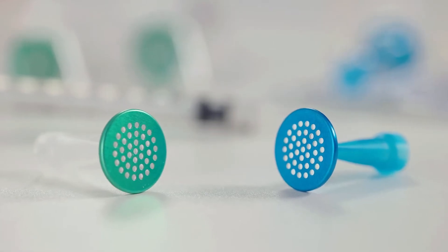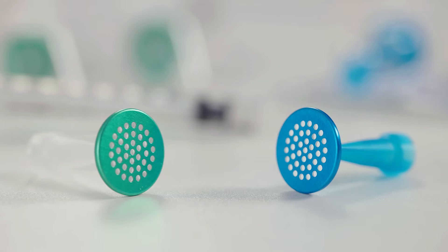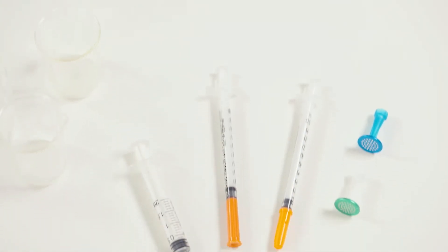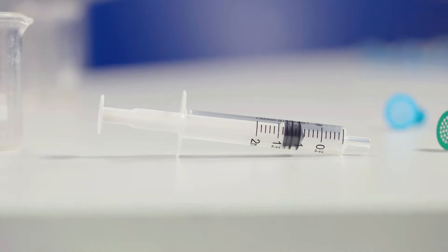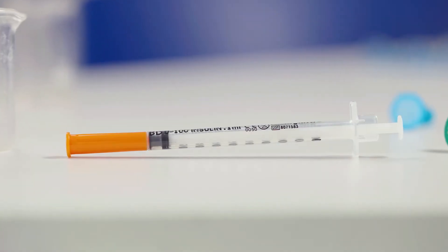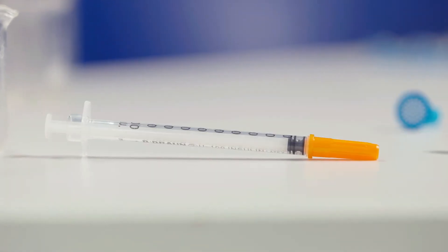Although they have different filtration capacities, both filters should be used in the same way. Here we will use the SteriFilt Plus with three different syringes: a needleless syringe, a BD insulin syringe, and a B-Braun Omnican syringe.